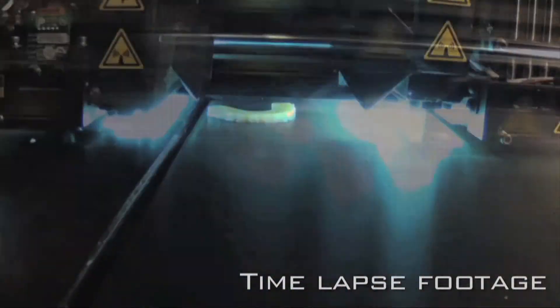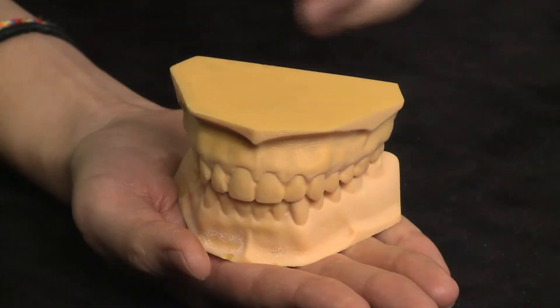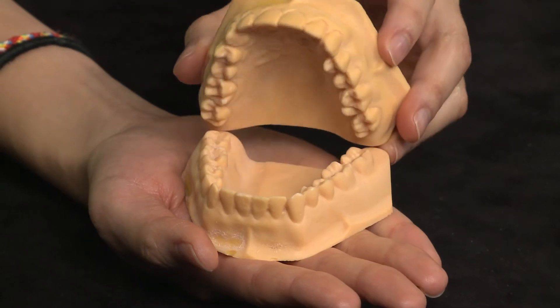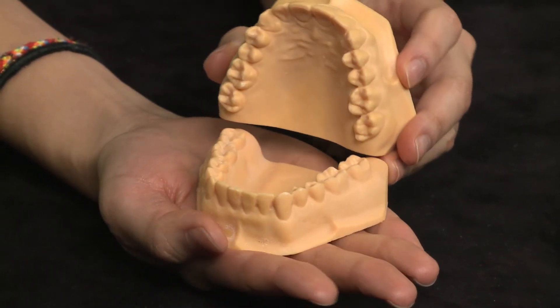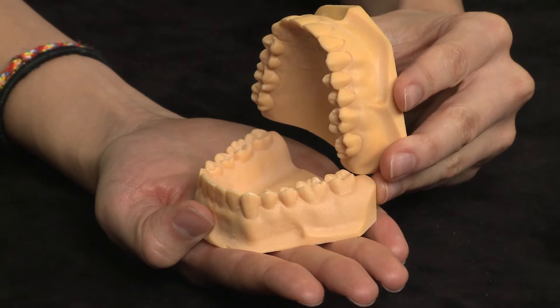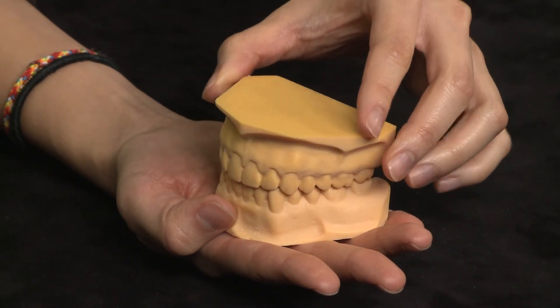If a dentist feels more comfortable having a physical replica to confirm the fit of the prosthesis, they can request a 3D printed model of the original digital scan for a nominal fee. The requested model is a 3D printed version of a traditional stone model and is sent to the doctor along with the final restoration.